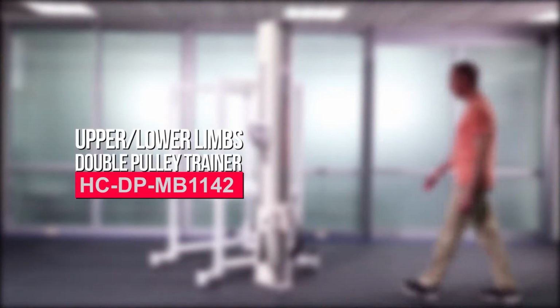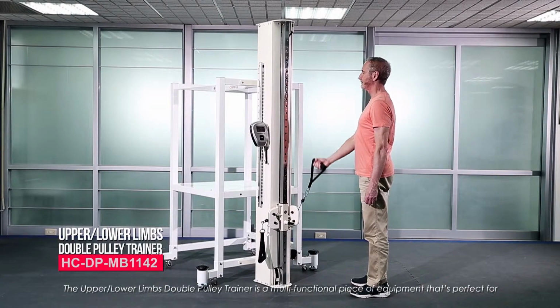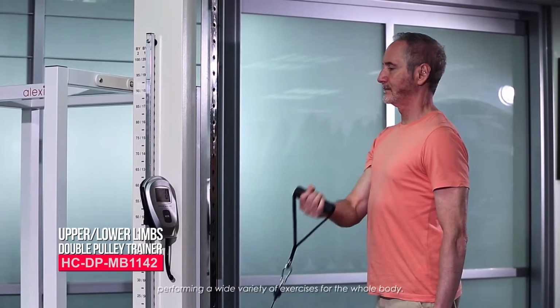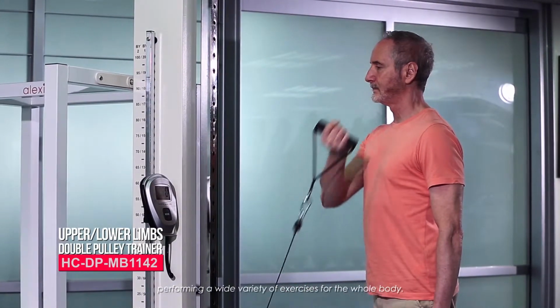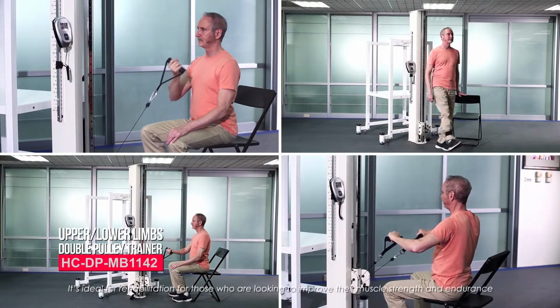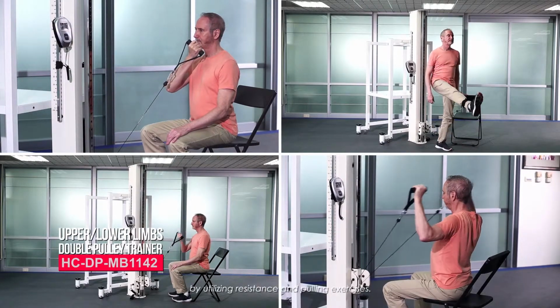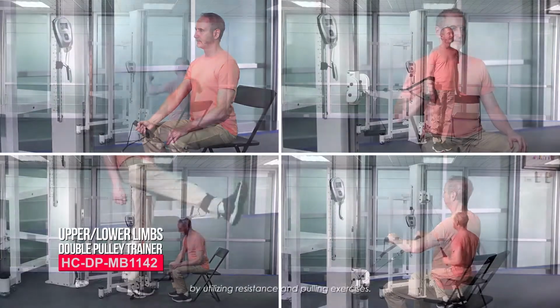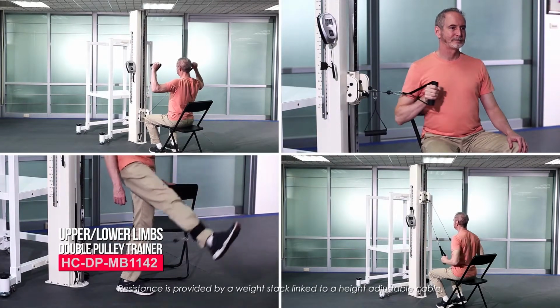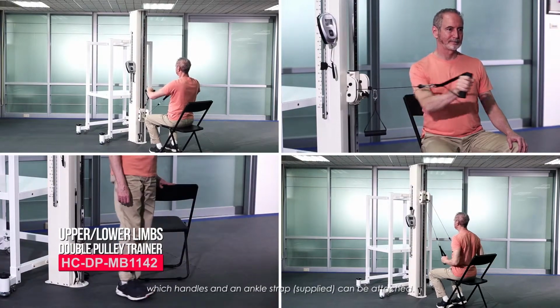Upper and lower limbs double pulley trainer. The upper and lower limbs double pulley trainer is a multifunctional piece of equipment that's perfect for performing a wide variety of exercises for the whole body. It's ideal for rehabilitation for those who are looking to improve their muscle strength and endurance by utilizing resistance and pulling exercises. Resistance is provided by a weight stack linked to a height-adjustable cable to which handles and an ankle strap, supplied, can be attached.